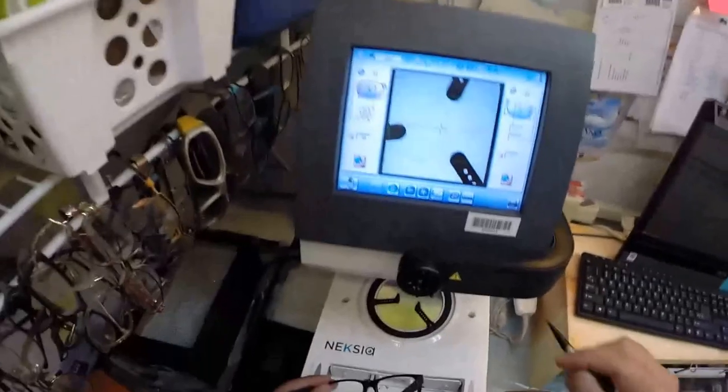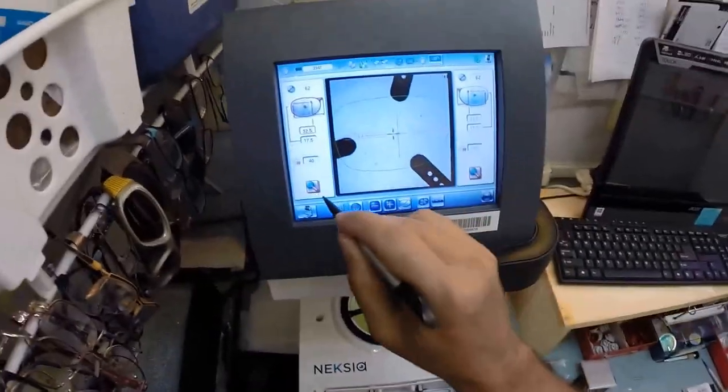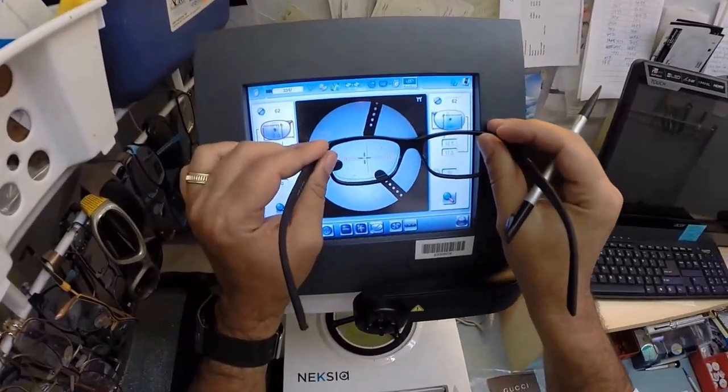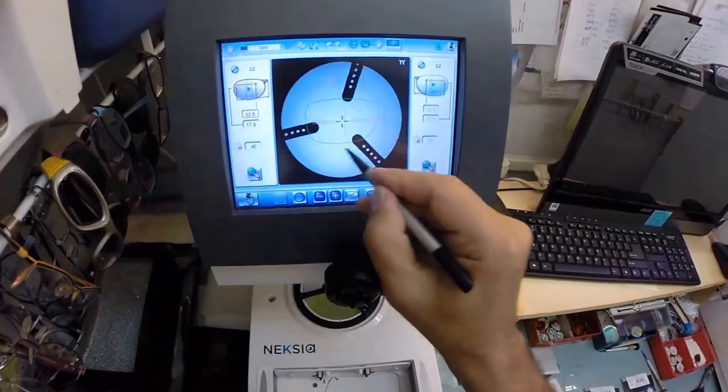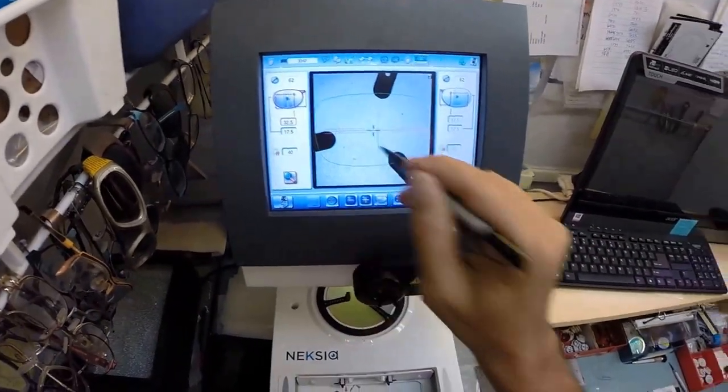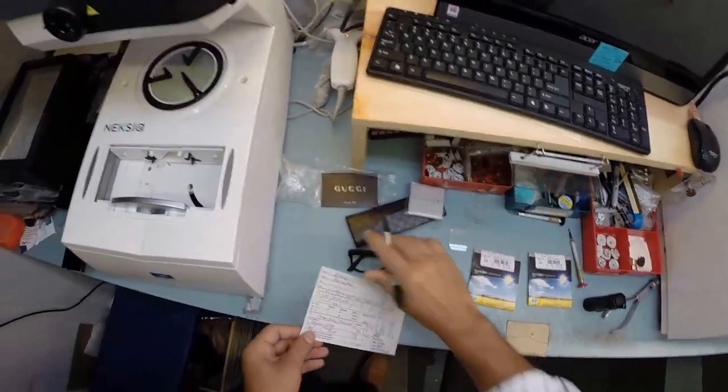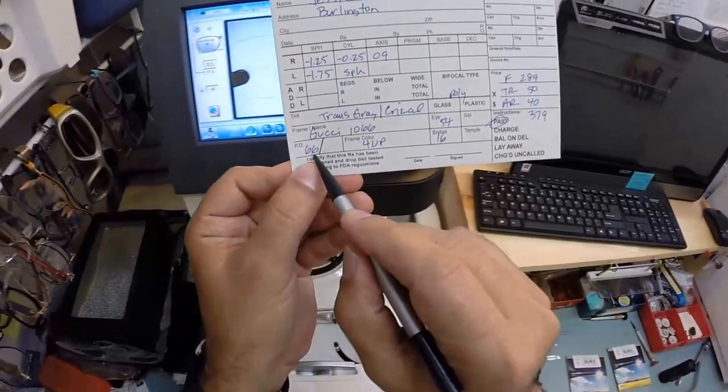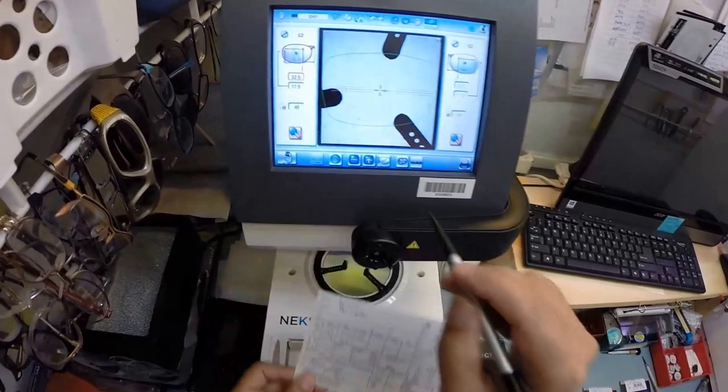Jesse, yours are a prescription. Ain't no getting around that. You need them. So this is the shape of the lens, only magnified. If I minify it down to the actual size, that green outline is what I'm working with, but I'm going to magnify it as I keep working.